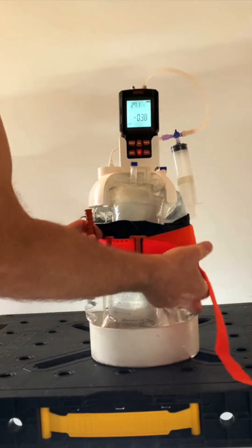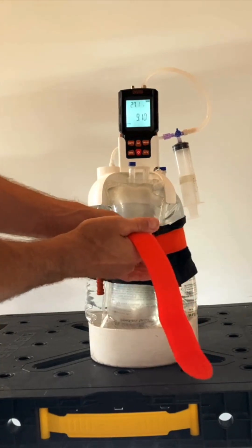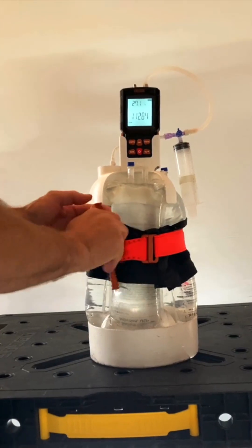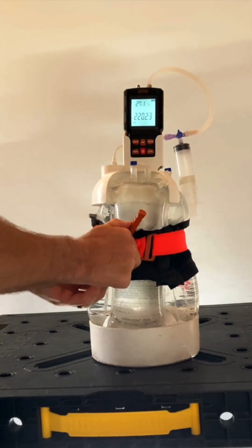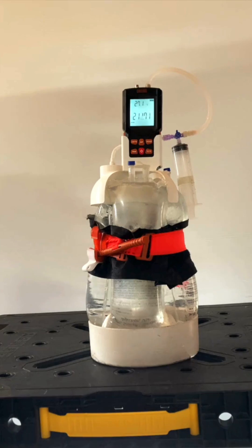This circumference here is roughly the size of my leg, just under 60 centimeters. I'm going to make it very tight, block it down, get as many turns as I can. This feels tighter than I would do to a patient, but there we go. Now let's watch this pressure over time.